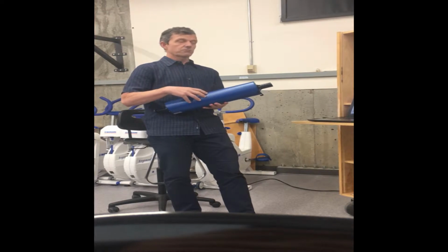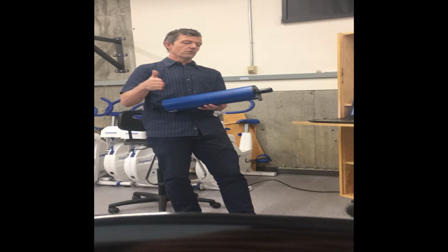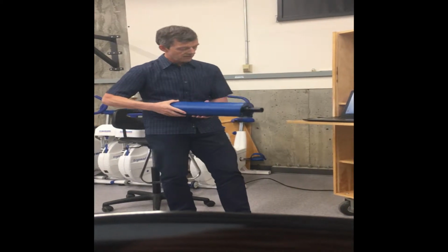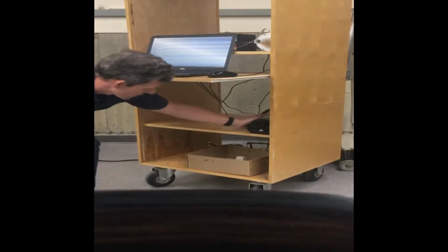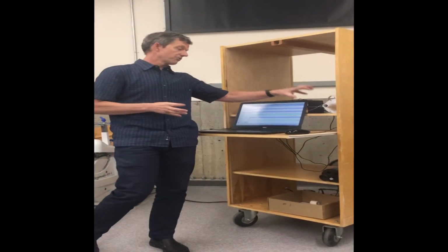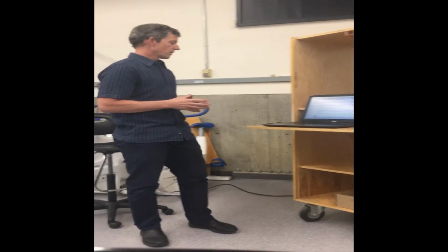So as part of this calibration protocol, we do a quick flow calibration. I do this 10 times. I then set my cursors in the right location, and then click OK, and then it knows that that was 3 liters of air that was coming in through each time. There's also a more elaborate calibration program that I did about a month ago. There's a calibration program that you can go through where you use the same syringe, but you're doing it for a longer period of time. So you're doing it up to 100 times and you're changing the rates. One thing we want to make sure when we're using this is that it's calculating flow correctly. We want to make sure that it's calculating the oxygen concentration correctly and the CO2 concentration correctly.